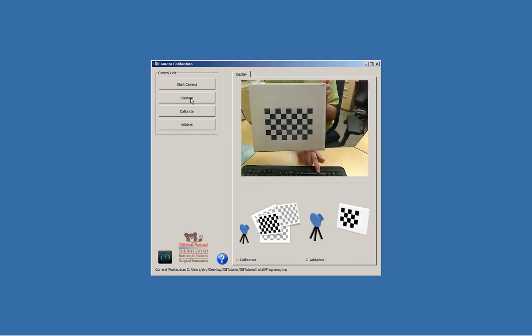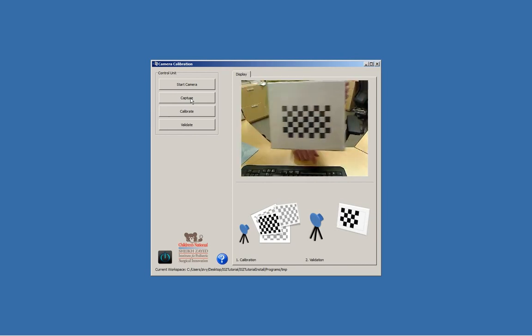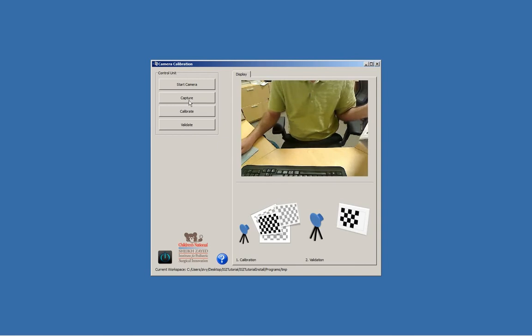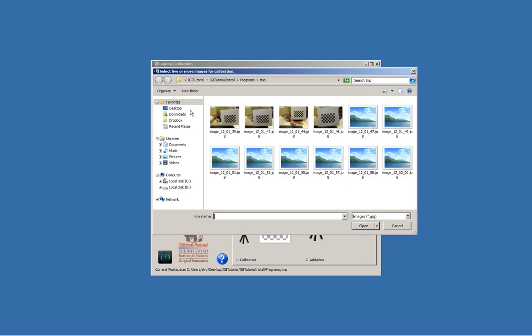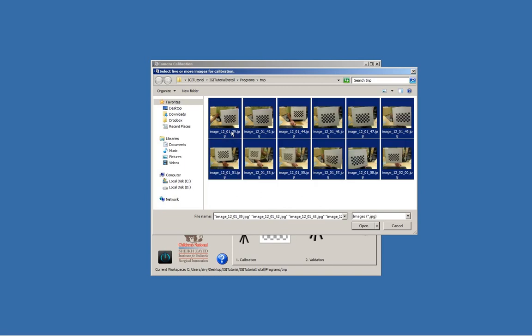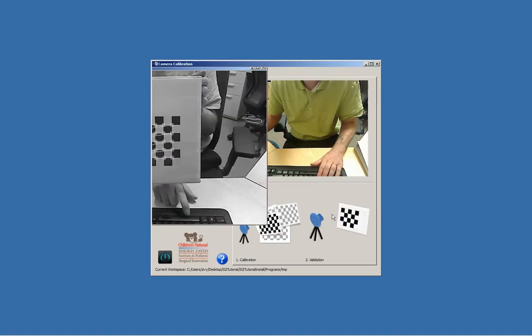We'll get a few more, and now we can calibrate. Press the calibration button. These are all the images that we acquired. They're in a temporary directory under the programs. You'll see the TMP directory that was created.